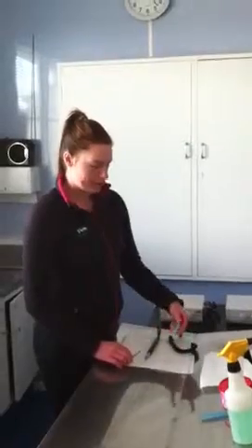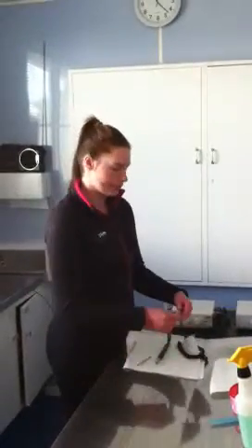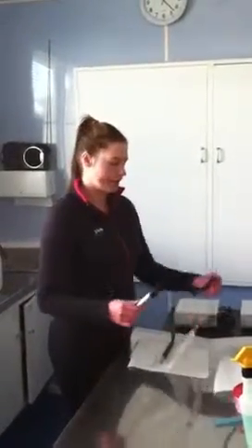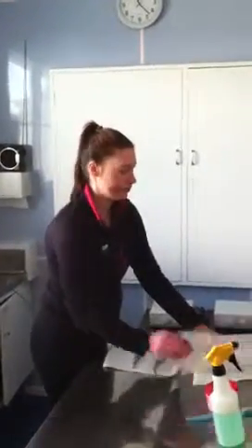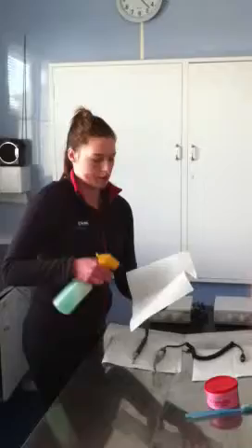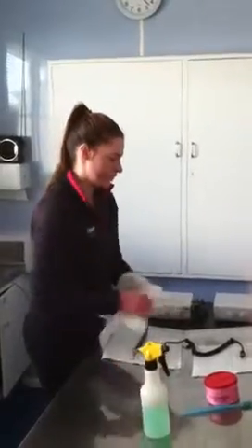Sophie Cookson, cleaning and storing the dental machine. I'm just going to show cleaning of the different instruments. Firstly, the polisher. We just want to make sure that the cord is clean, and we just use a tri-gene-based wipe.